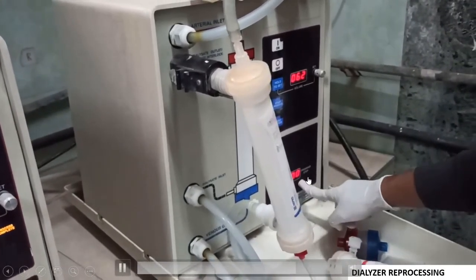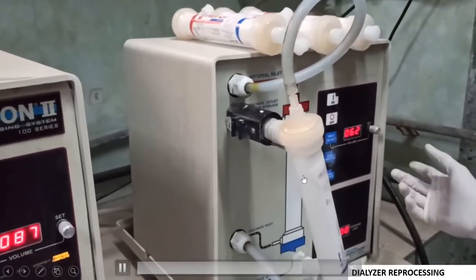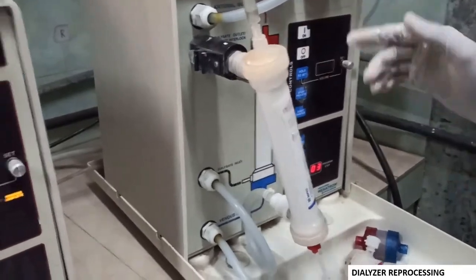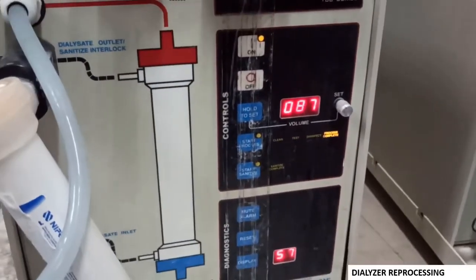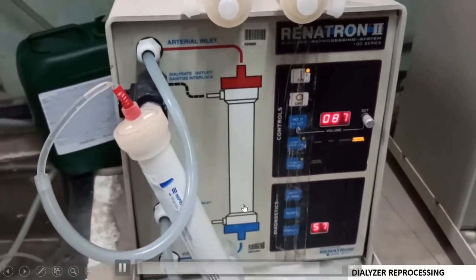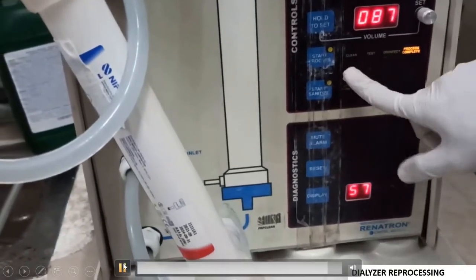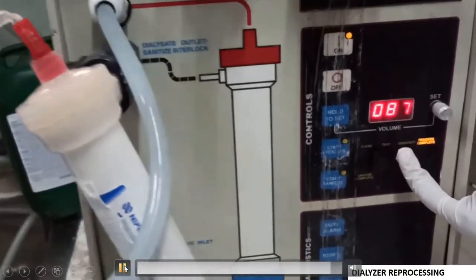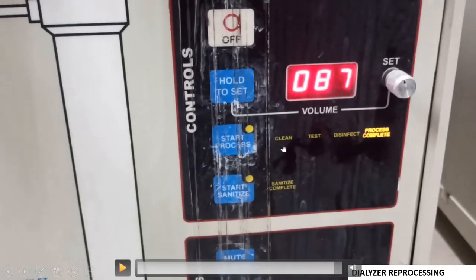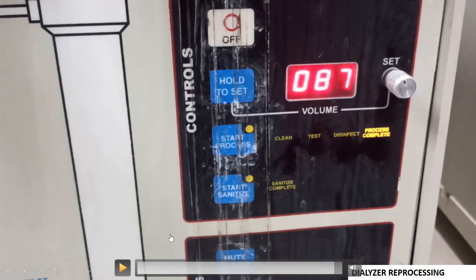The second panel is showing zero because the process is yet to start. As shown at the beginning of the video, once 57 is showing, completion of all 57 steps will be confirmed. Once we start, the process will go on. The dialyser reprocessing has started. The panel shows the processes involved: first is clean, followed by test, then disinfect, and finally an alarm for process complete will occur.